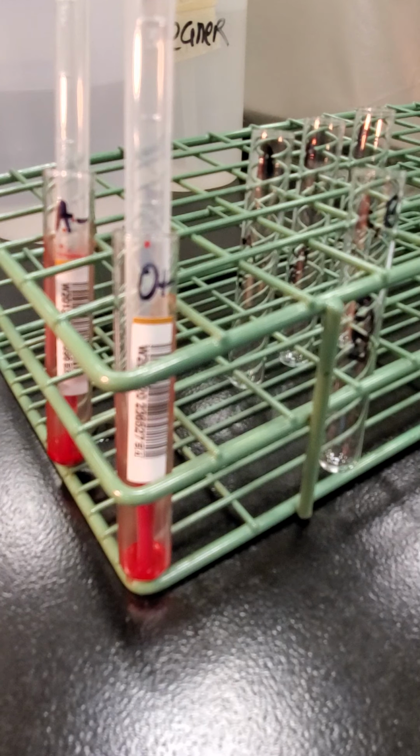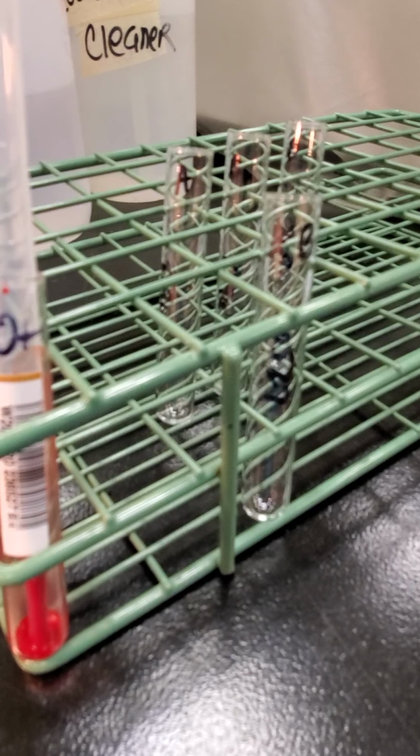And then your interpretation also, if it confirms that the unit is O-pos or whatever, you would just put the type in the interpretation column. So O-pos, O-neg, A-pos, A-neg, etc. And then also put NT in the columns for the testing that you're not performing. So while that's spinning and getting ready, I'm going to get my reagent set up.